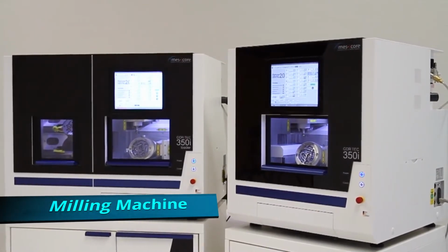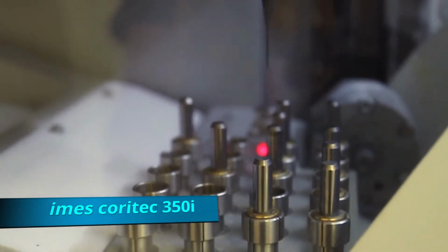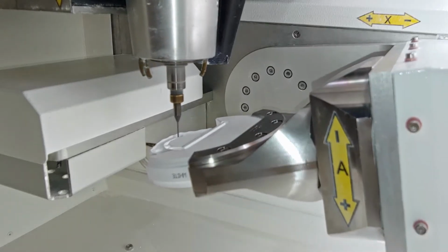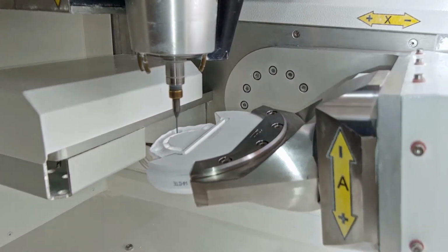Hard to imagine a modern dental lab without milling machines. You can upgrade your lab with the fairly compact but powerful Coritec 350i series milling machine from imes-icore. The 350i is a great all-arounder, capable of processing most of the materials used in modern dentistry.